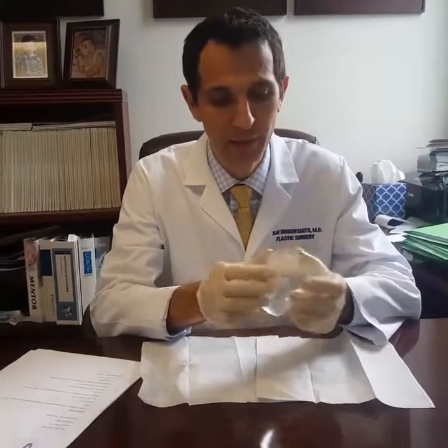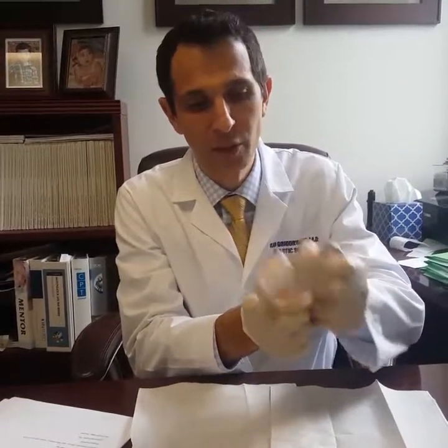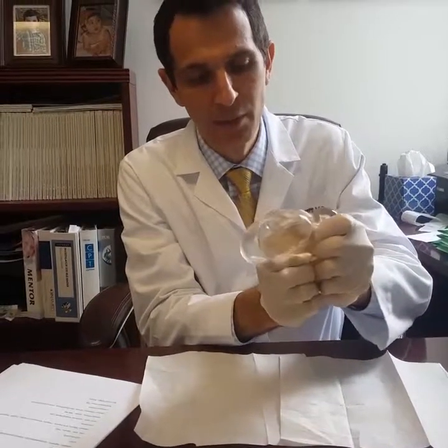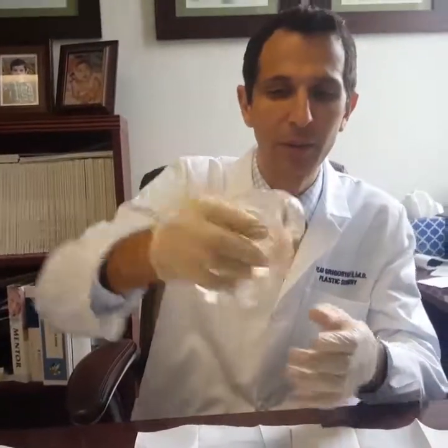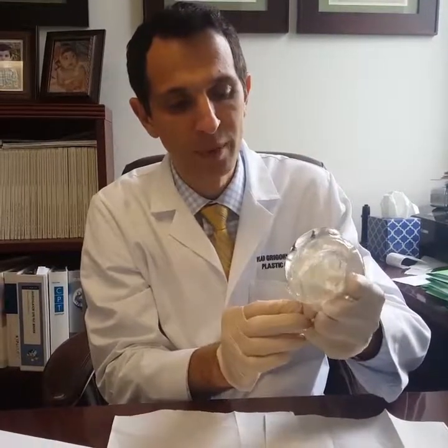I made a hole in this implant and that's what it looks like. See the gel coming out? It's clearly not fluid — I can shake it and it doesn't come out, it doesn't spill out. It's like bubble gum, or people call it gummy bear sometimes. More came out as I'm squeezing it and you can see it still would not fall out. Now it goes back in. So it's not the type of thick oil that we used to have before.